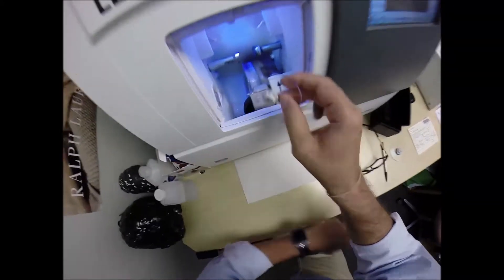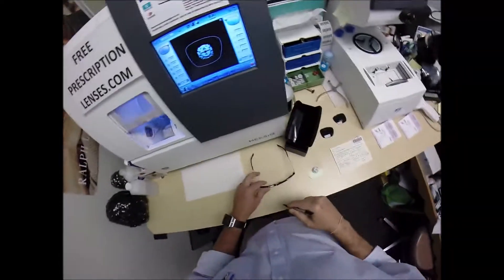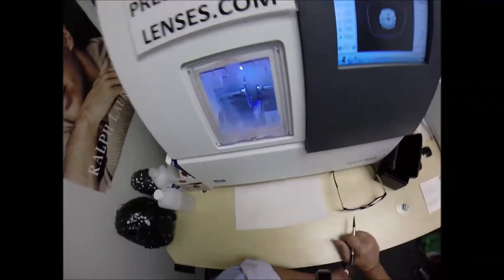I'm not going to put a safety bevel on the front convex surface of the lens, but I am going to put one on the rear concave surface of the lens. I'm going to press the sticker on there firmly, place the magnet into the chuck, or as I like to call it, the Charles, because I just don't know this machine well enough to call it chuck.